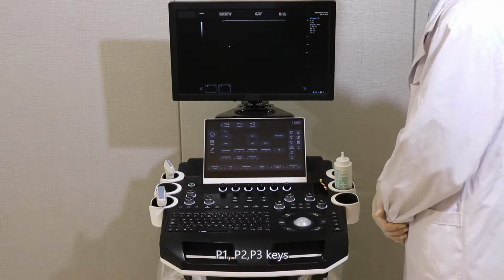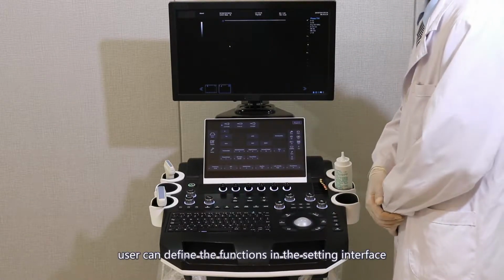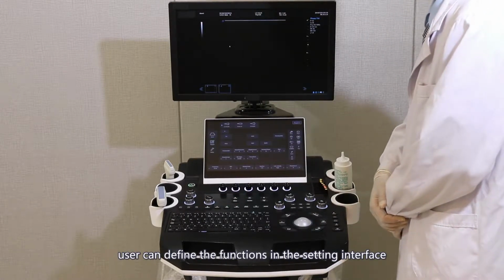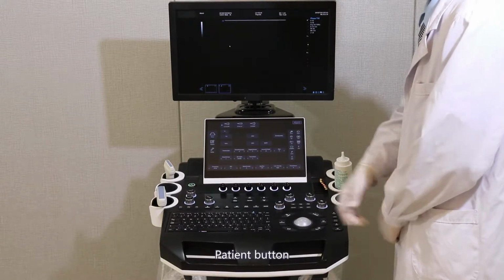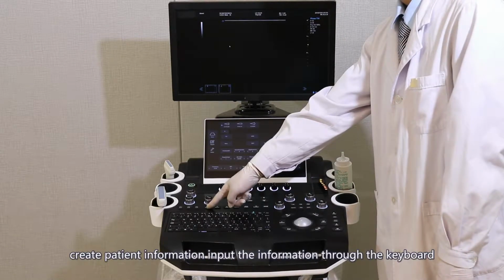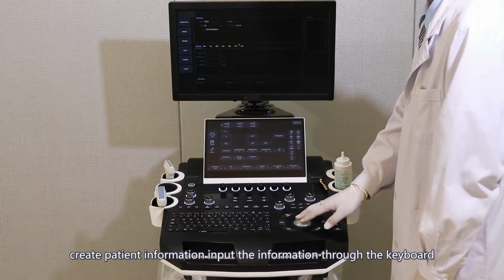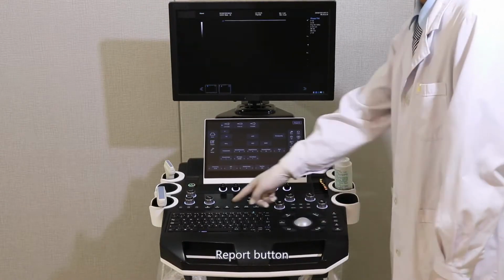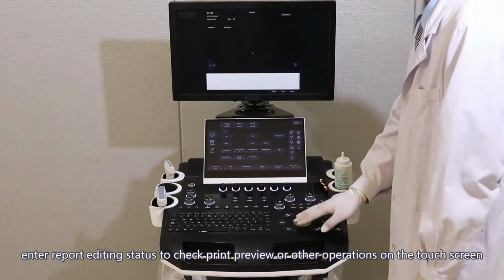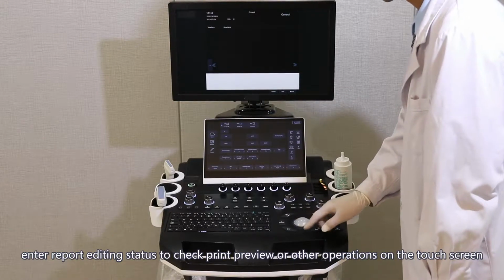P1, P2, and P3 keys. Customize keys. The user can define the functions in the setting interface. Patient button. Create patient information. Input the information through the keyboard. Report button. Enter report editing status to check print preview or other operations on the touch screen.